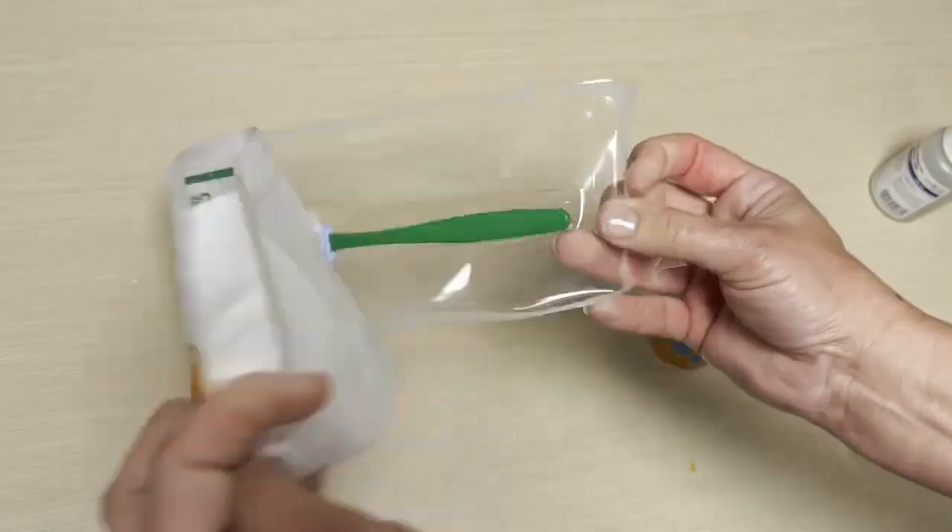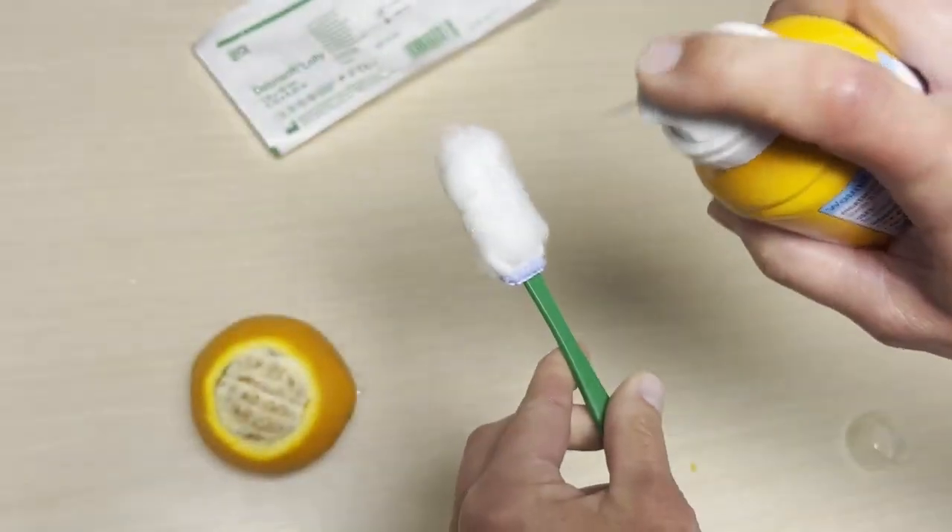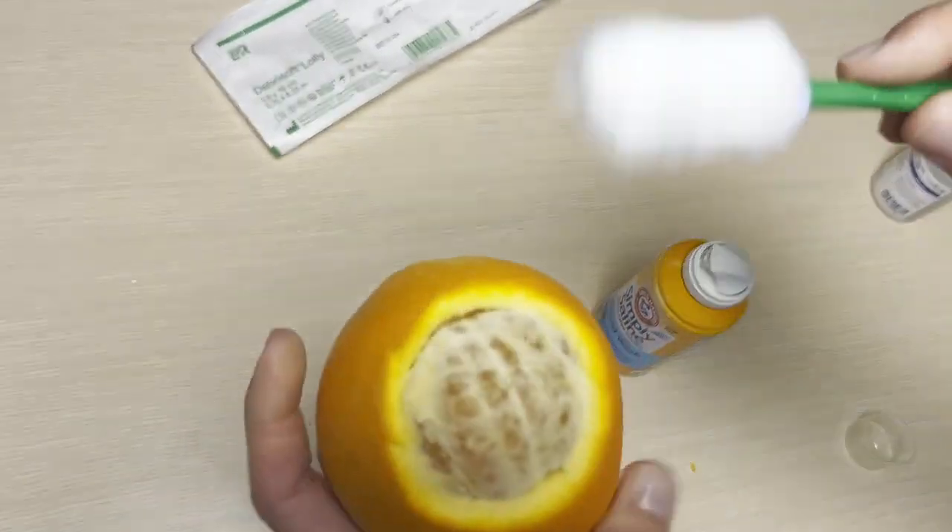What is really, really cool about these products is they don't disturb the newly growing skin — we call that granulation. That's different kinds of tissues being formed, and the epithelialization, as we mentioned earlier. This material only grabs all the gunk and doesn't disturb anything else that's growing in there. So you should start to see improvement very soon if you're going to use something like this.